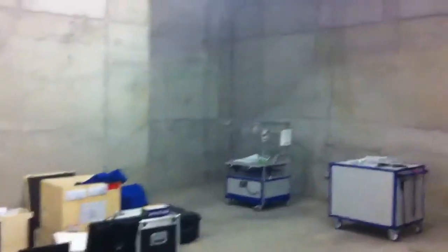They weren't even going to put any HVAC system in here initially — until I pushed for it. If people are going to be doing anything in here and have to have that light, you've got to have HVAC or something, you've got to have air flow in here. I have never seen a raw vault before.